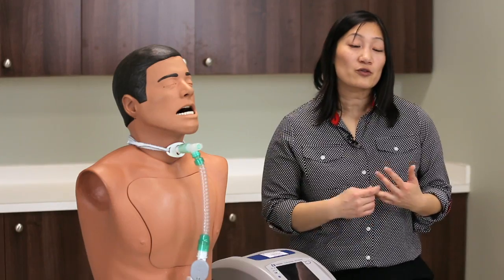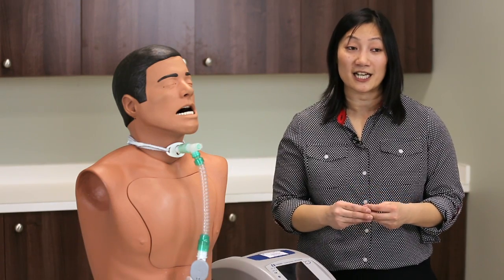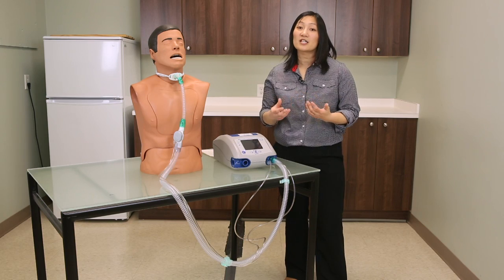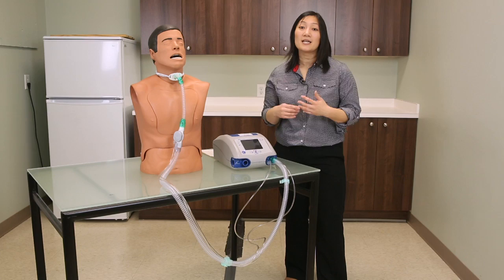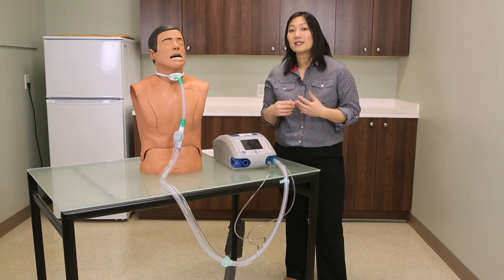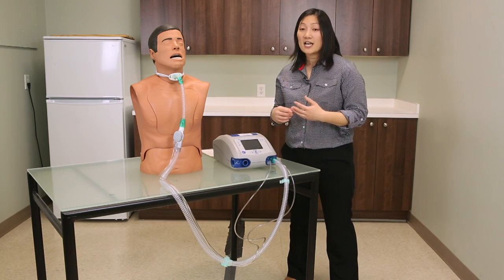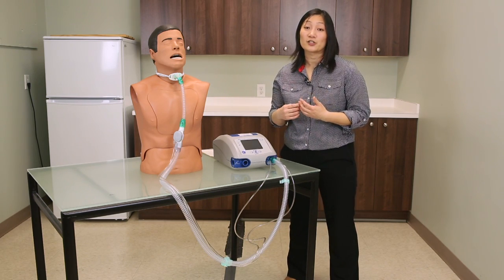A low pressure alarm, or patient disconnect alarm, occurs when the client's circuit is no longer attached to the client and results in the client not being assisted by the ventilator. If you have a client who is ventilator dependent and has a minimum independent breathing time, an appropriately set low pressure alarm is essential for the client's safety and requires immediate intervention.